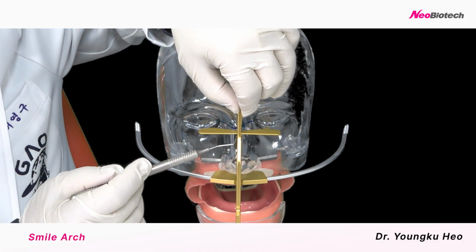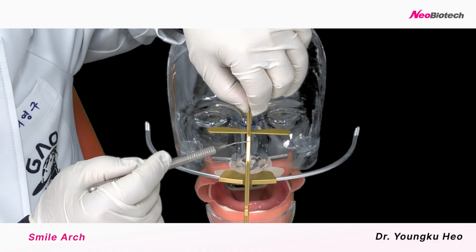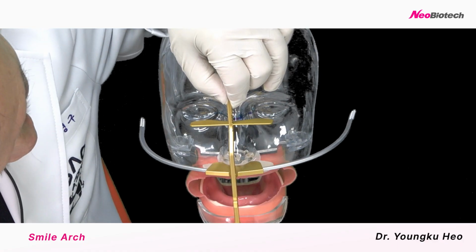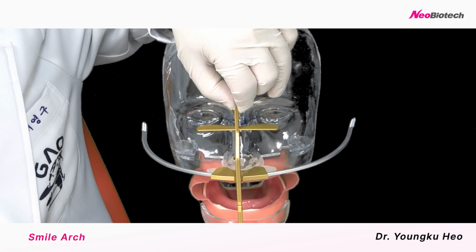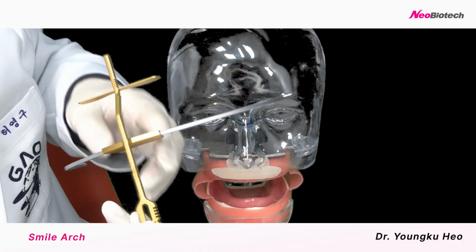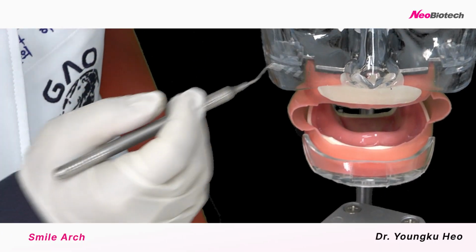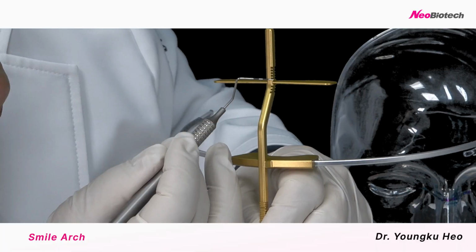So in this case, maybe almost the same. So that means this vertical dimension should be the standard line like this, or if it's 1 millimeter longer on the upper line here, then we go 1 point lower. All right, and also this is the D bar.